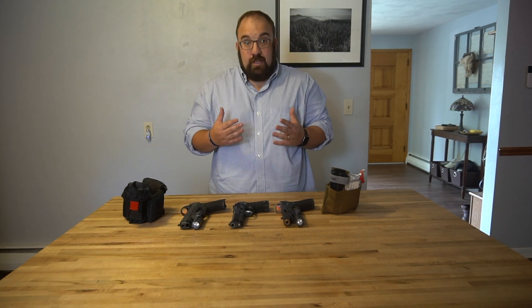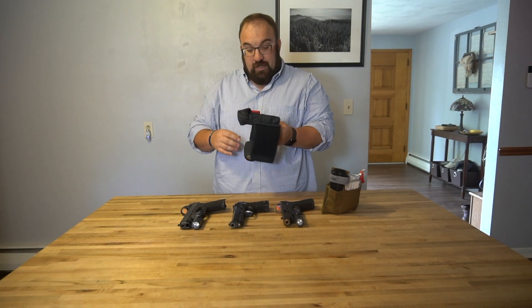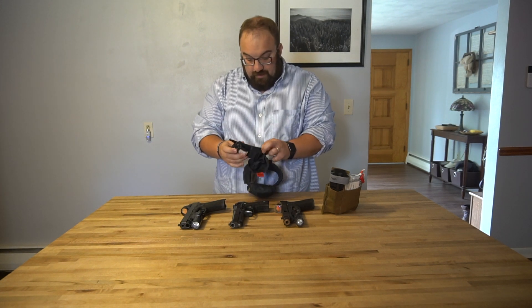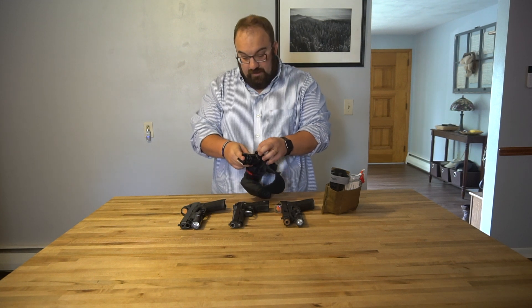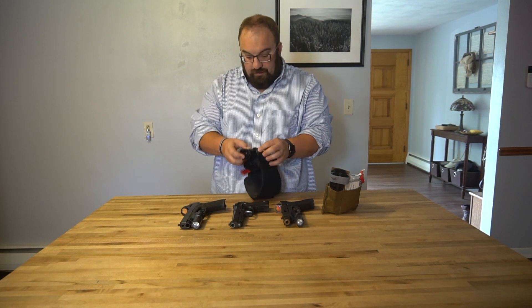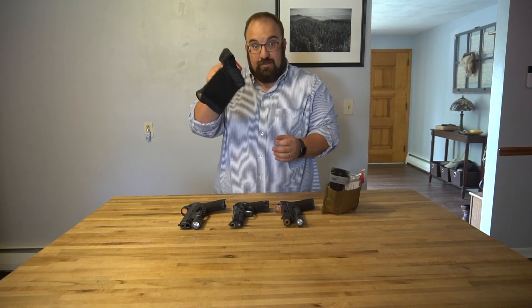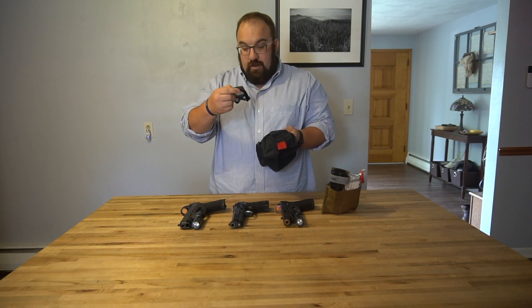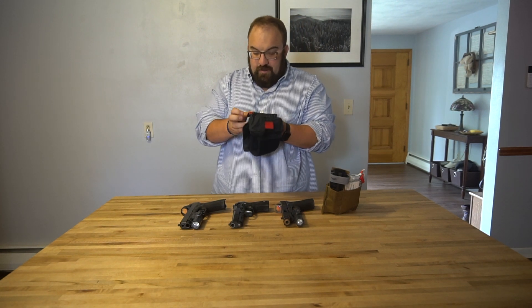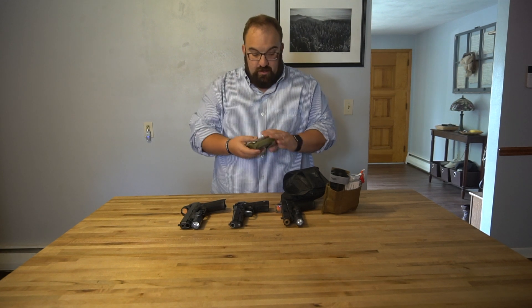I have been carrying medical gear EDC on my person for a long time using this North American Rescue ankle medical kit. This kit contains a tourniquet — in this case I've got a soft-T wide in there. Everybody knows about the differences between soft-T's and CAT tourniquets. Use the stuff that works; don't use knockoffs, don't buy your med gear on Amazon. There's also a little bit of vacuum Z-folded gauze, and an emergency trauma dressing — an ETD all flattened up and laid out.